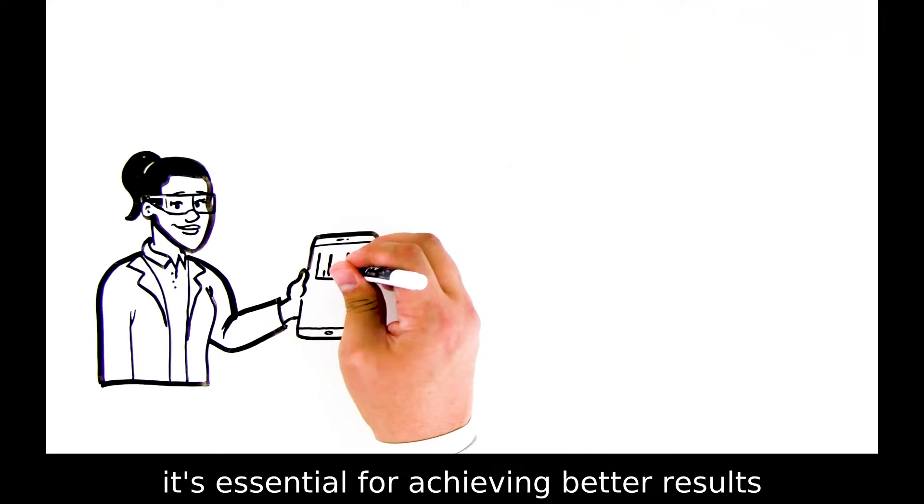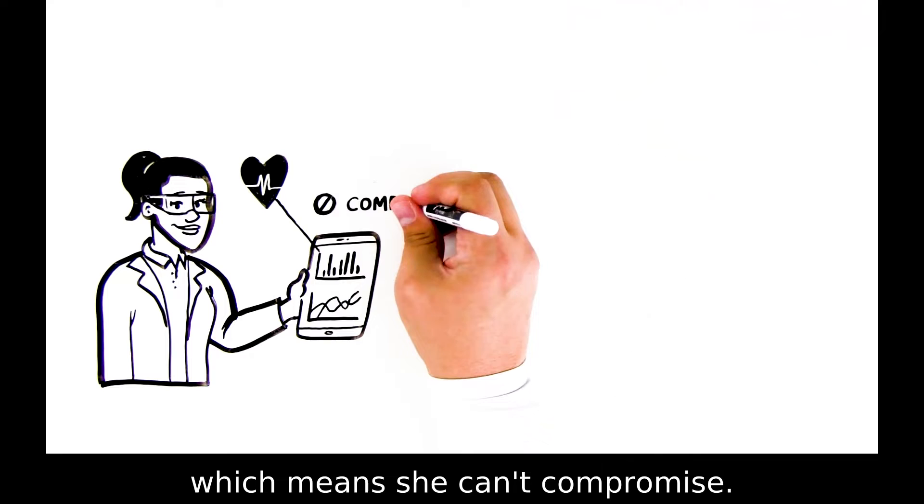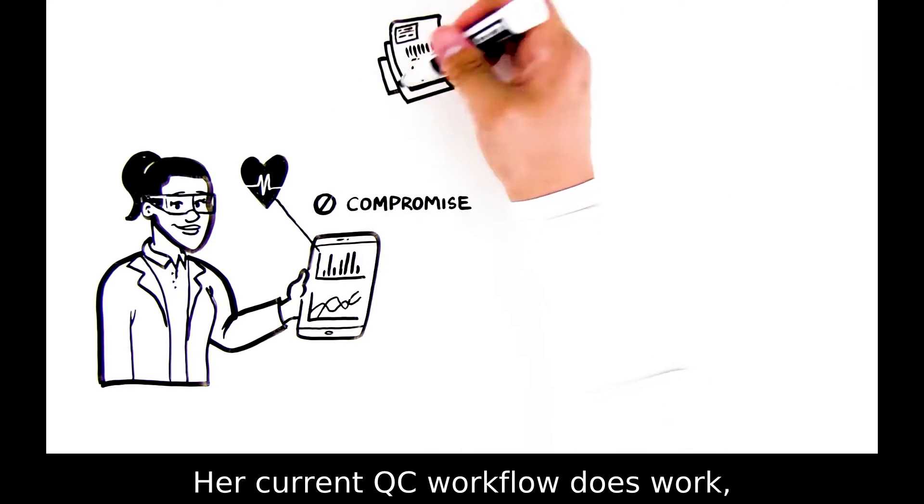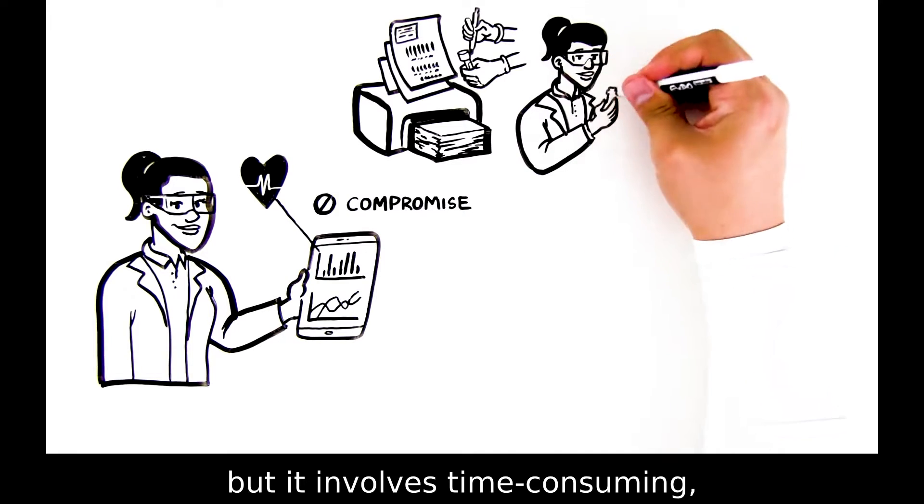It's essential for achieving better results and better patient outcomes, which means she can't compromise. Her current QC workflow does work, but it involves time-consuming manual steps.